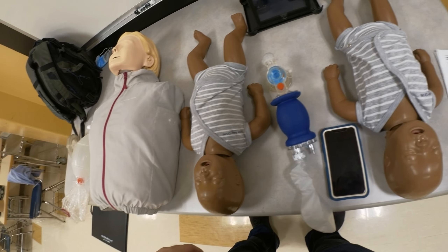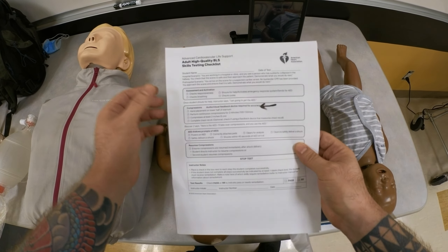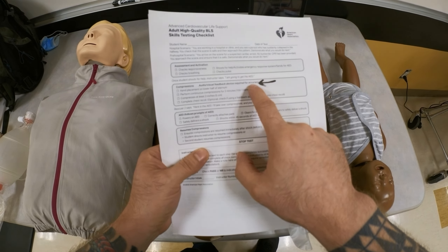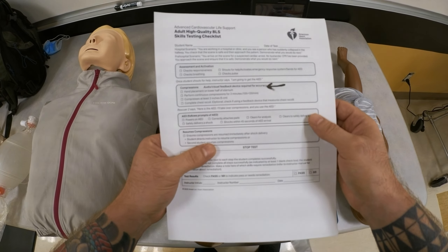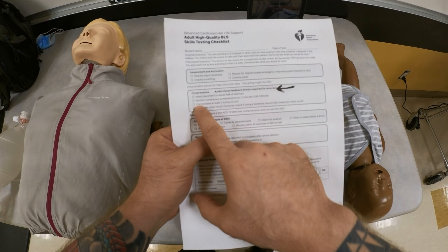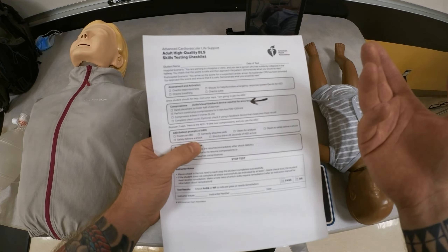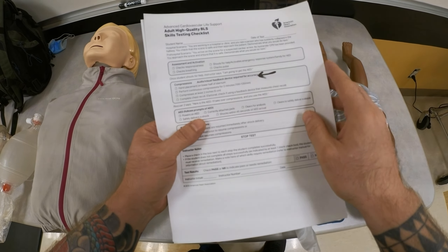If you look at the 2020 testing skill sheets for AHA — this is the ACLS high-quality CPR component — you'll notice in this box it says audiovisual feedback device is required for accuracy. The reason it's no longer just preferred is that you must be objectively able to monitor the student's performance, meaning you can see them compress at least two inches and perform continuous compressions for two minutes at a rate of 100 to 120 per minute. The only way you can really tell that is if you actually have a feedback device that measures it.